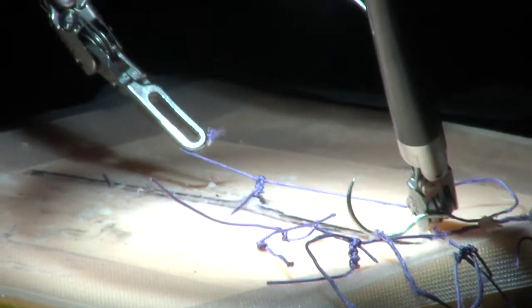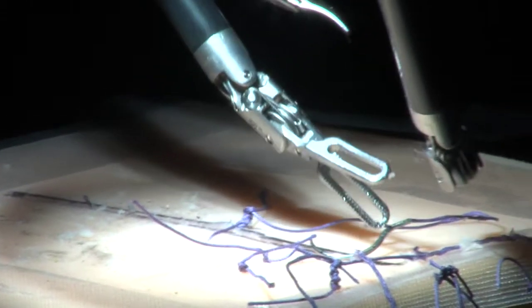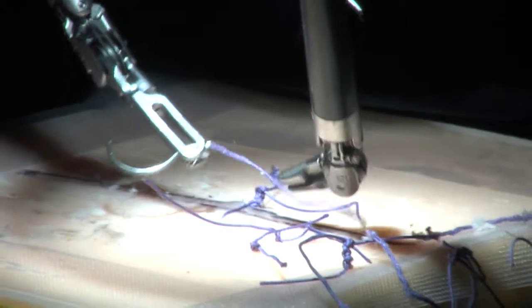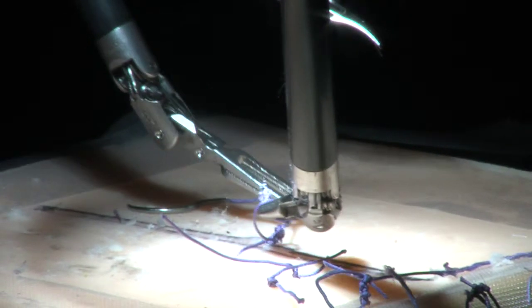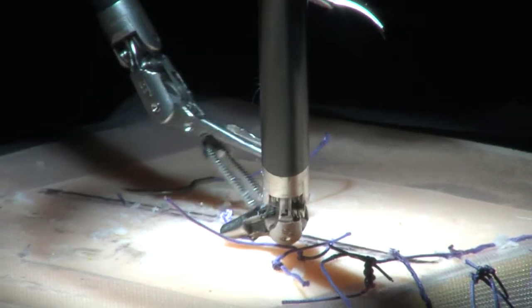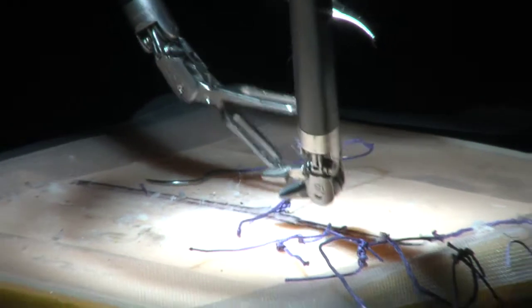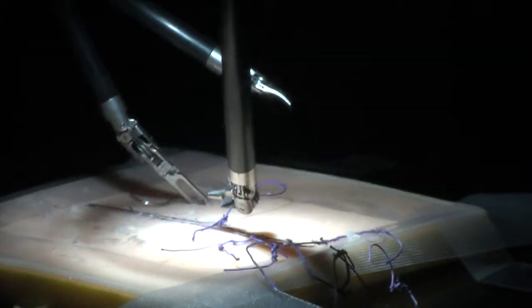Because we can suture things precisely all around, which we couldn't do in open surgery, the patient's recovery is much faster and the length of wearing a Foley catheter after surgery is much shorter.